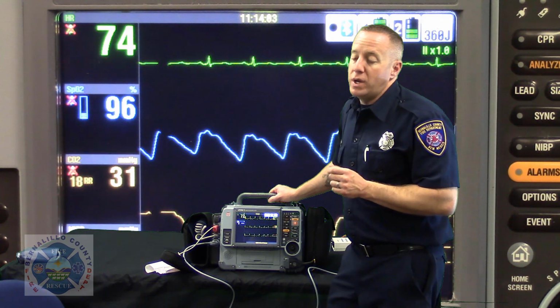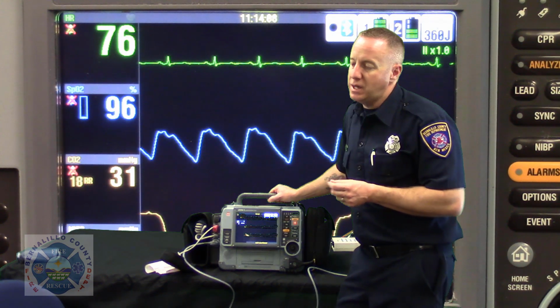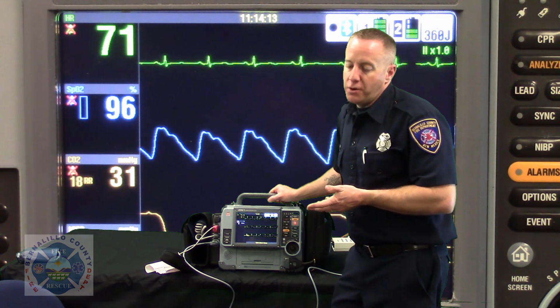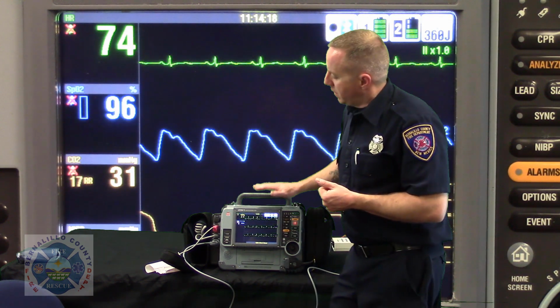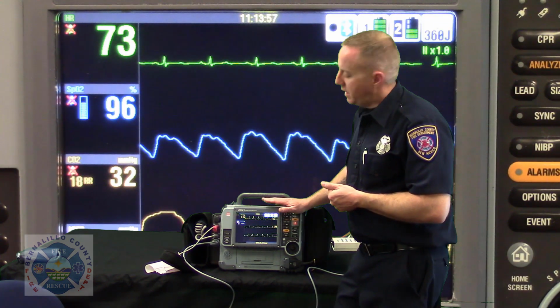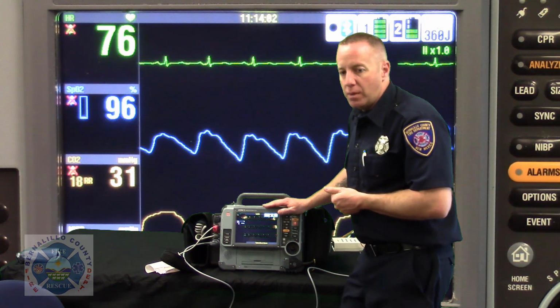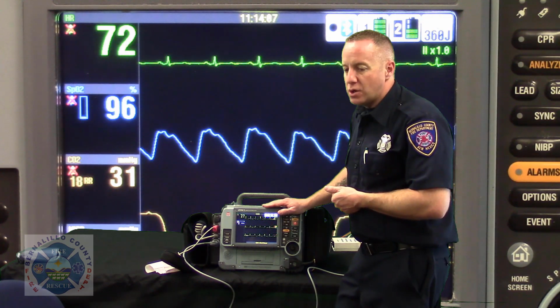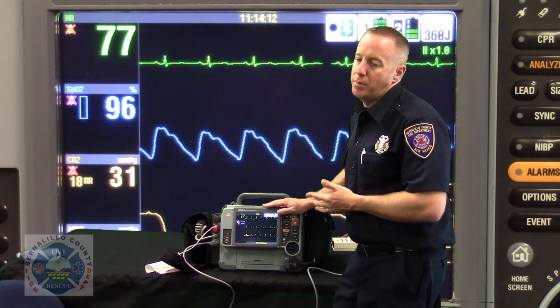and the age wheel turned to the correct age, as if you're doing a juvenile or adolescent or child EKG, and let's say we scroll that down and we're doing a 12-lead on a 13 or 10 or 7-year-old male or female, Lifepack 15 is going to make some adjustments in the way that it's going to interpret that. It knows that it's a pediatric EKG, and it has some other electrical considerations to do for its own interpretation of that EKG. So by entering the age and the gender, it's going to go ahead and make those adjustments, something that you and I won't be able to adjust.